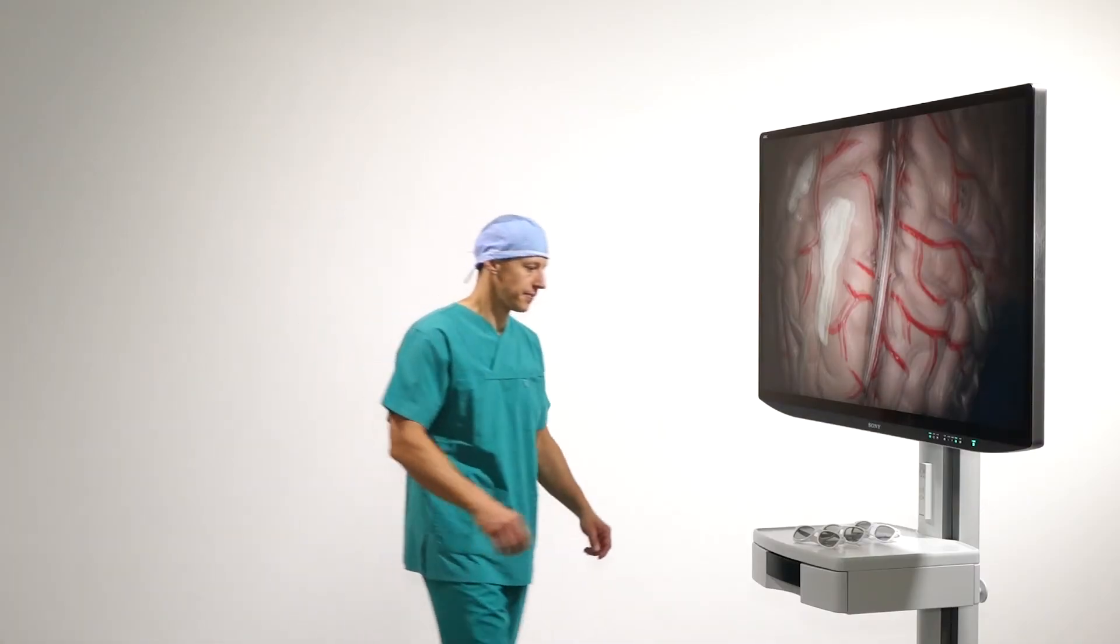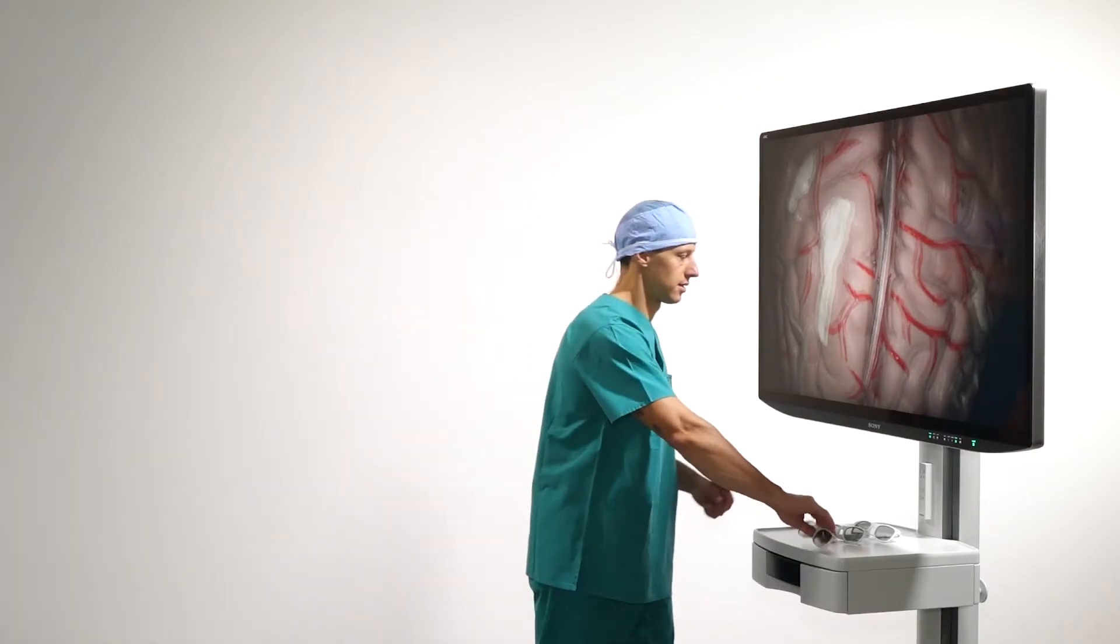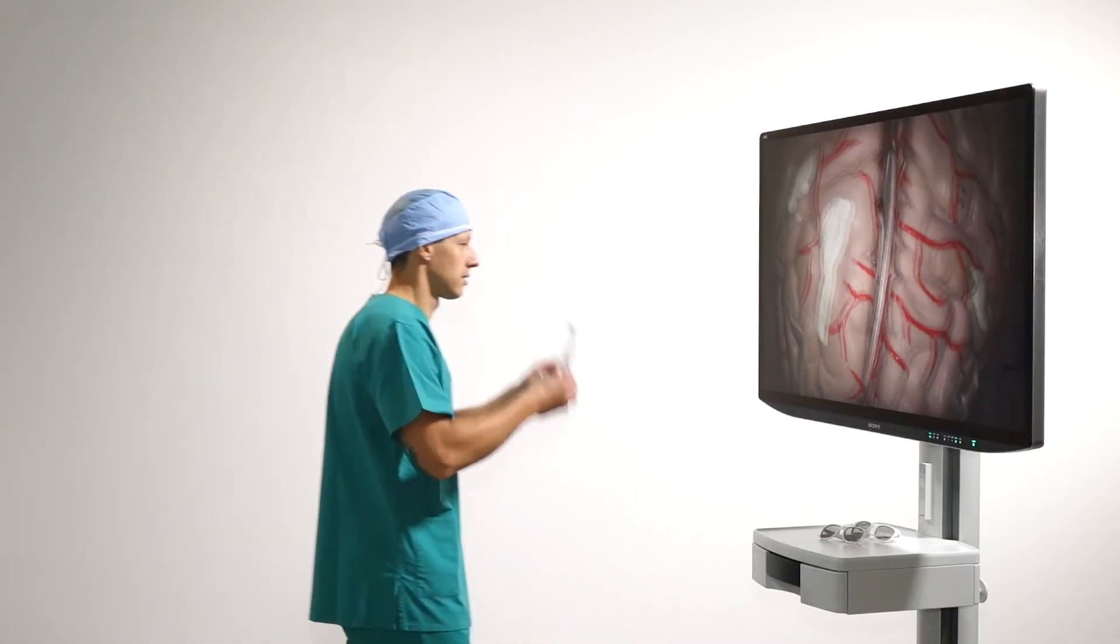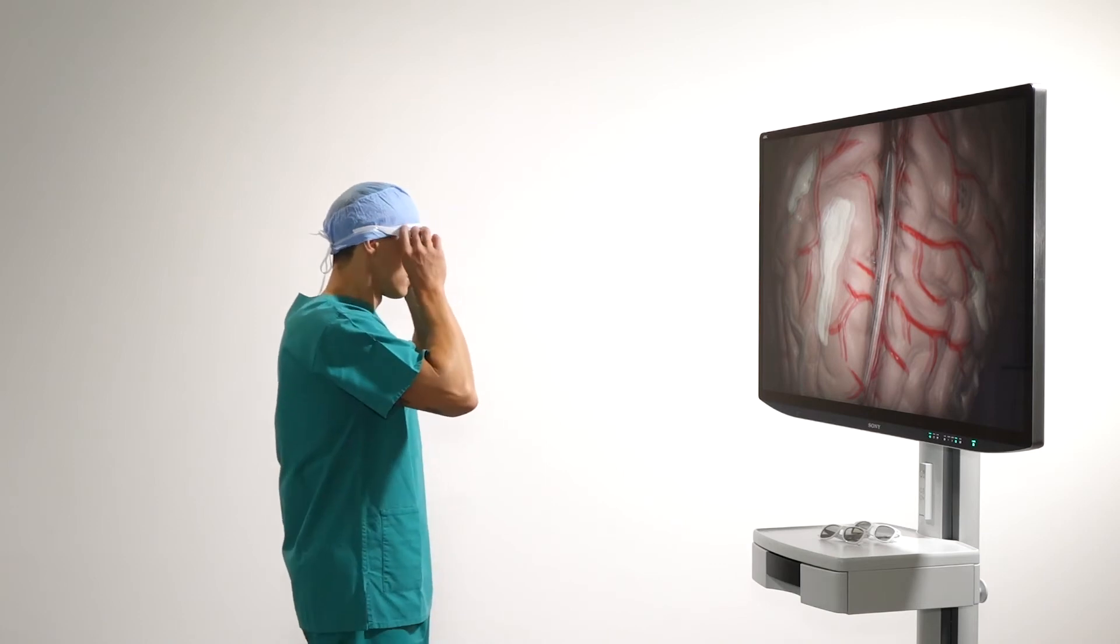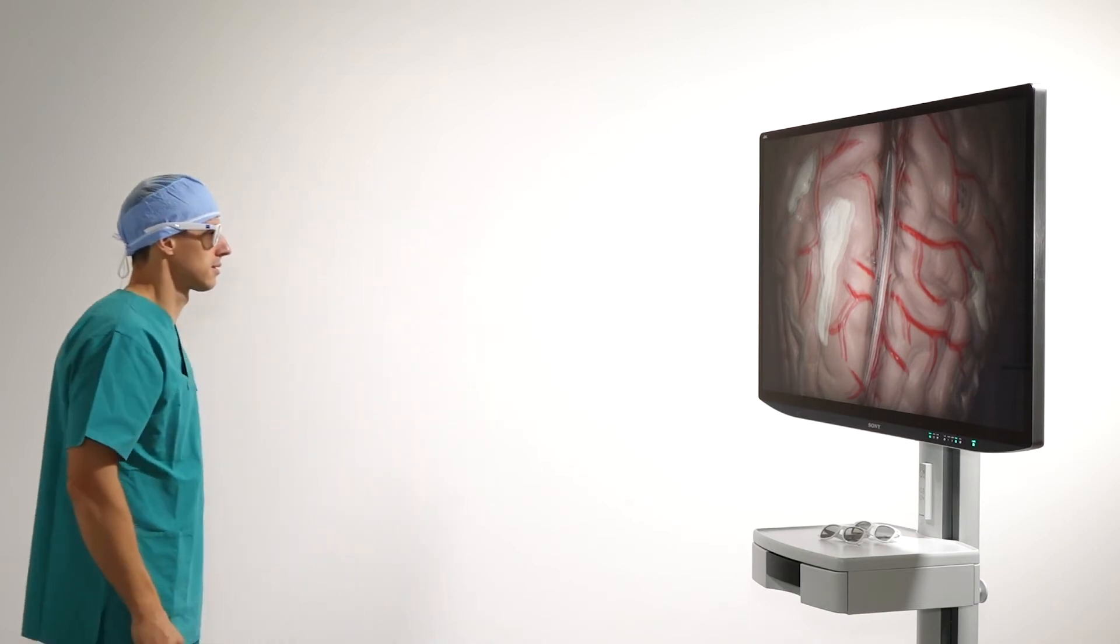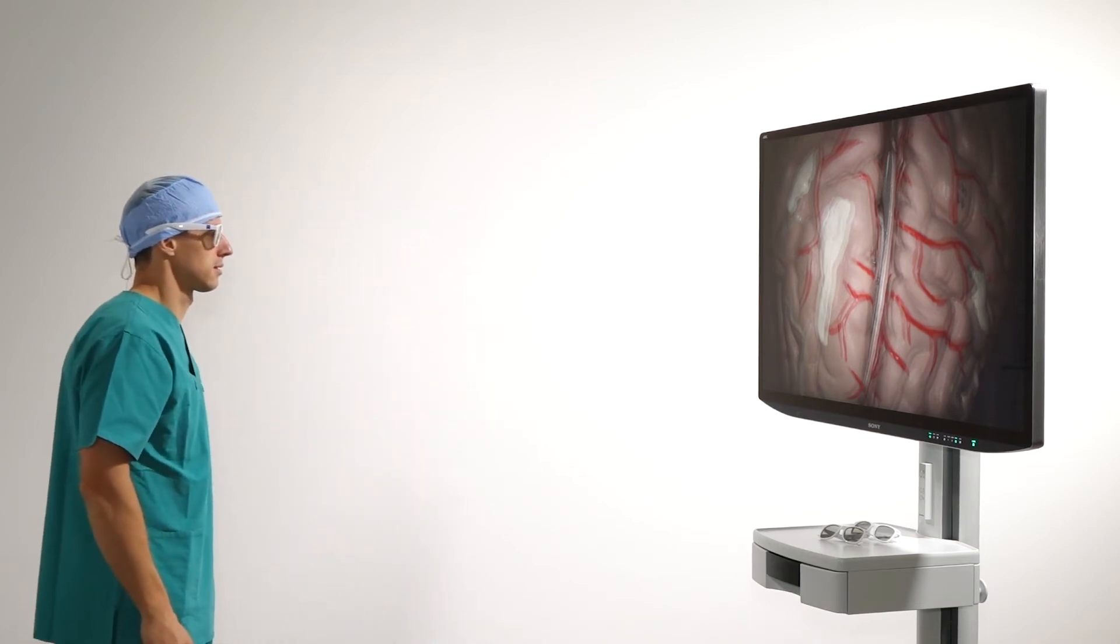Verify the 3D image by using 3D glasses. For a proper image, you need a viewing distance of 2 meters or more.